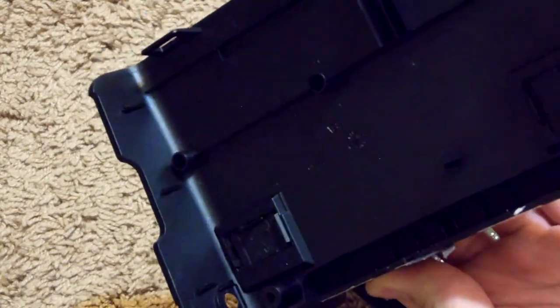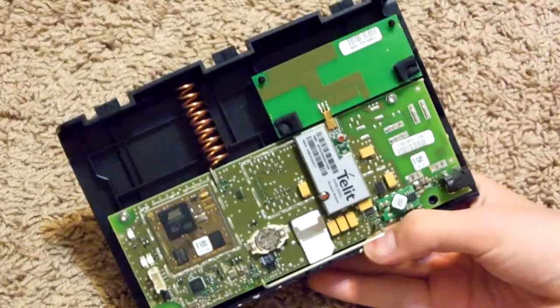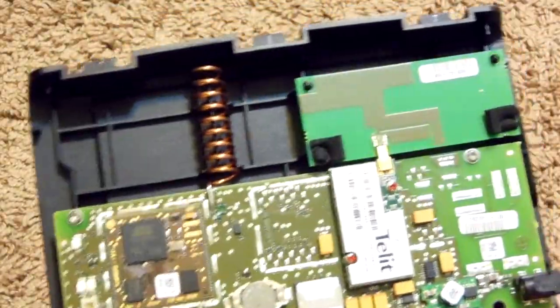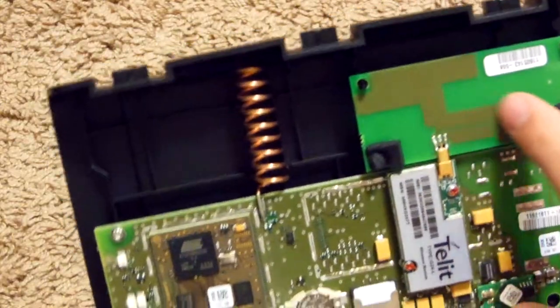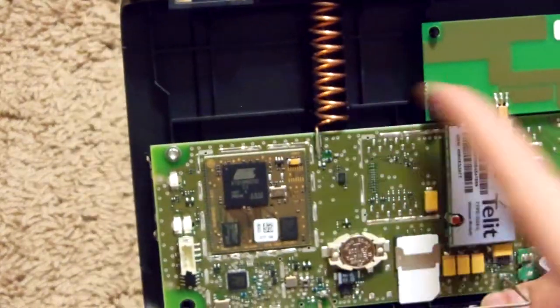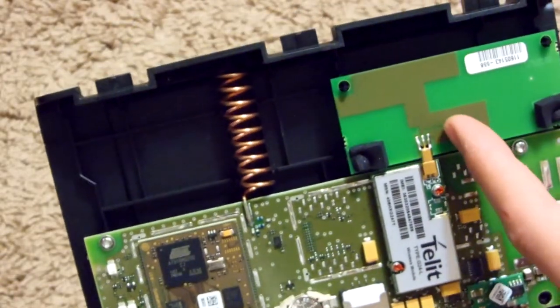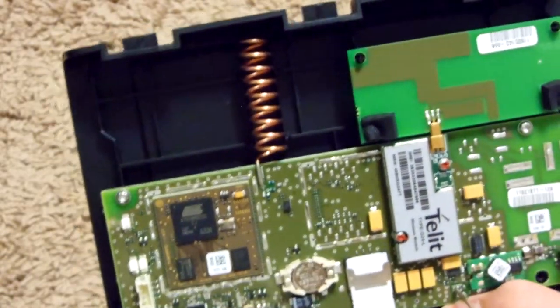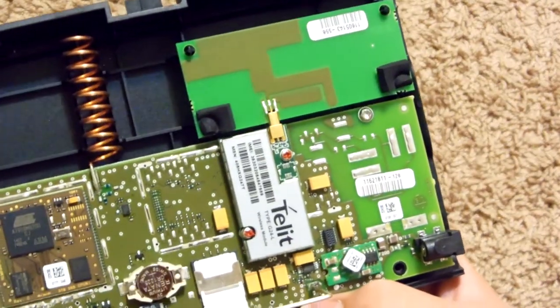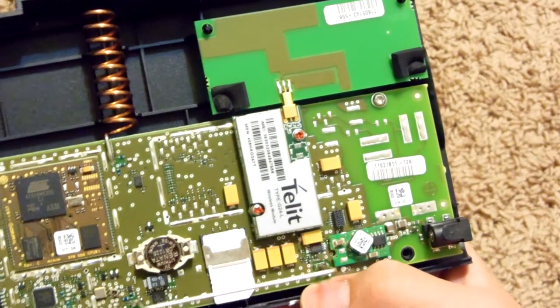And there's our piece of plastic backing. Look at this — it's quite complex. That looks like the antenna module there. There are two different types of antennas: this one is a helical, and the other I'm not sure what kind it is. I'm guessing one communicates to the pacemaker and the other communicates with the hospital.